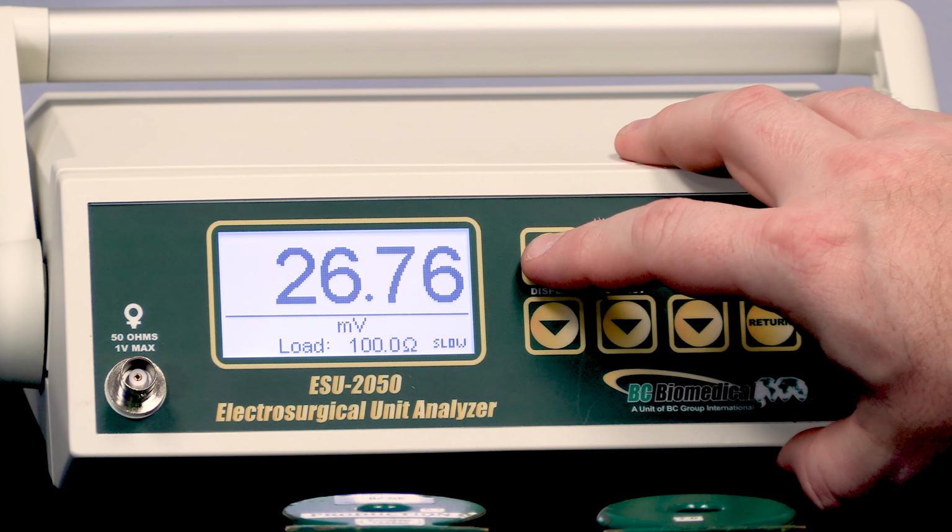Now the other thing that's important is if I want to get a more precise measurement of watts, I can actually measure the resistance of each load, and then I can tweak these to get the exact value. My 10 ohm load isn't going to be exactly 10 ohms, it may be 10.4 ohms. So I can go into this screen and adjust the actual resistance of each load that I have available.